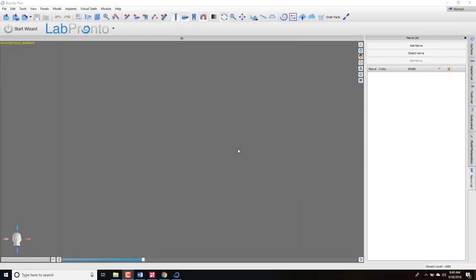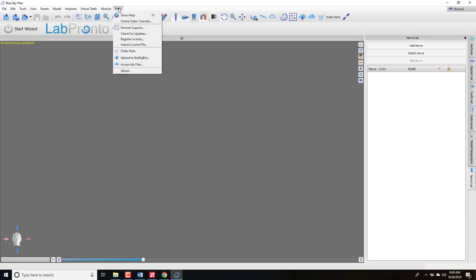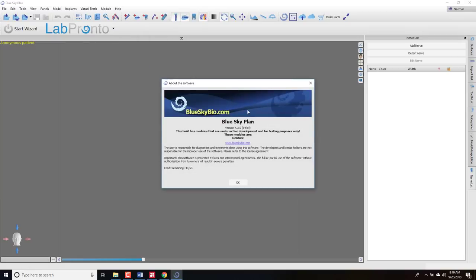Hey there, this is Dr. Corey Glenn with Blue Sky Bio and I'm going to be showing in this video the new digital denture update. The digital denture software has been in beta mode — this is one of the first public releases. Still many changes to come, many things to make it more efficient, but this is still very usable with most bugs worked out. I'm going to show you in this tutorial how to use it, and I'll attach the actual files in the comments so you can try this out.